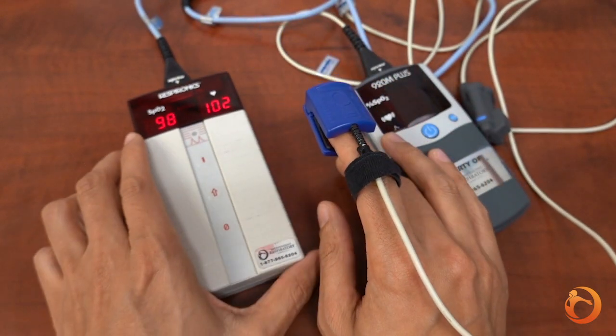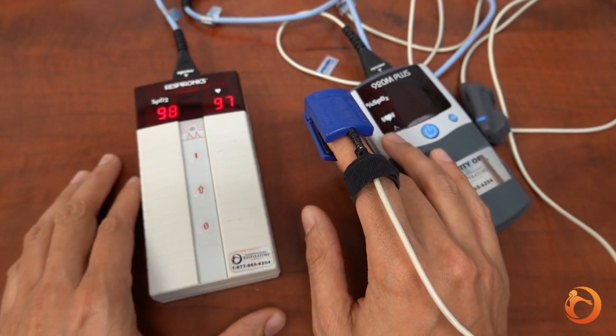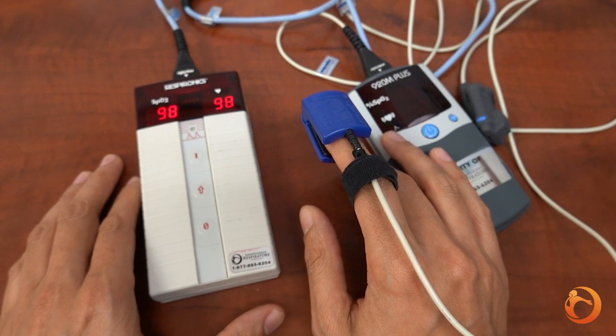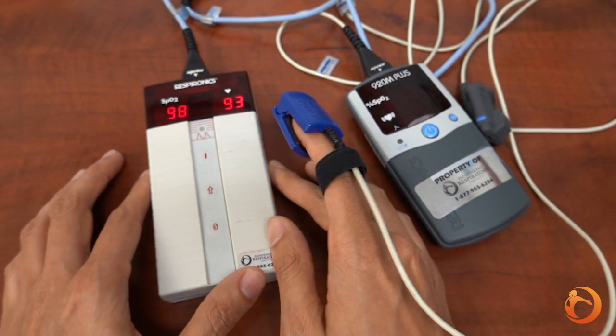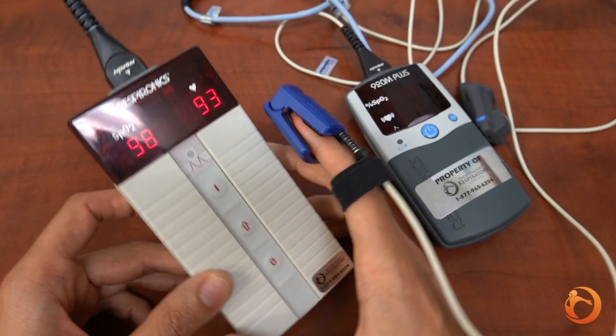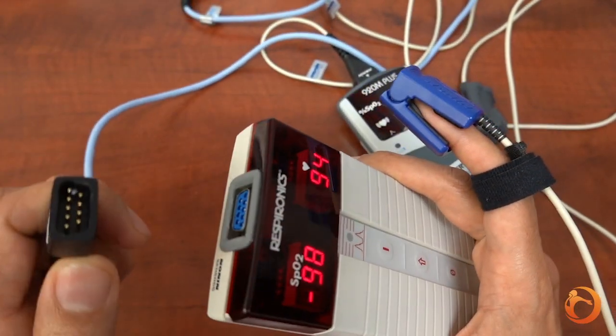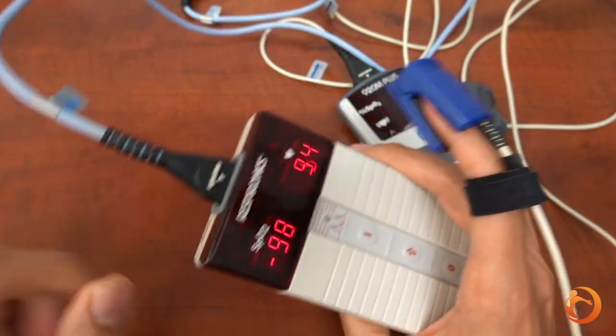Place the device on a night table or tuck it in on the side of your pillow. Keep it on for the whole night or the time you are in bed. For bathroom breaks you could either take the device with you or disconnect the cable from the device and reconnect it again when you're back.